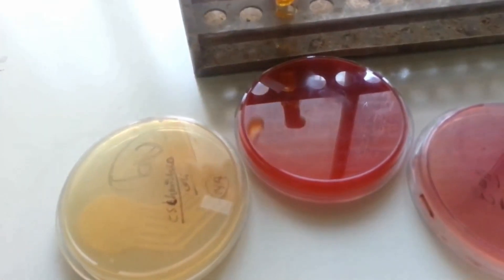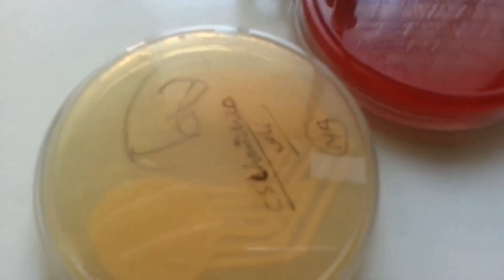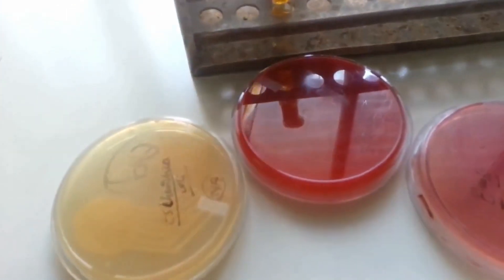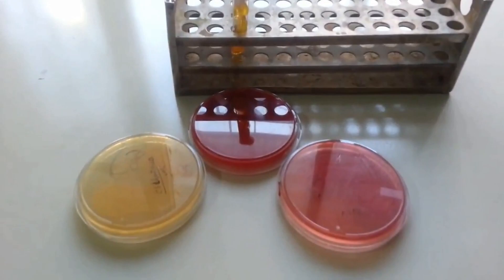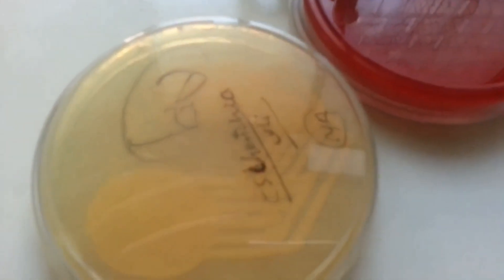And therefore the organism is E. coli. I hope this video is useful.